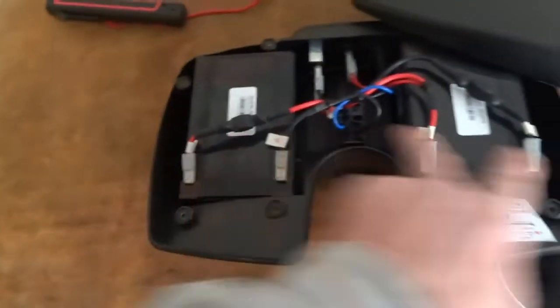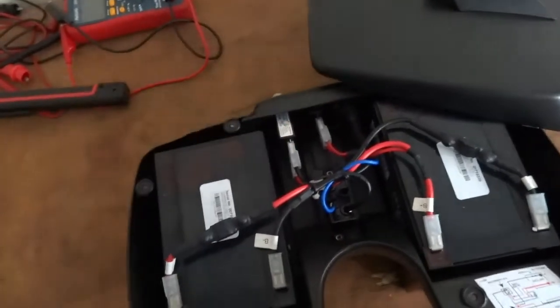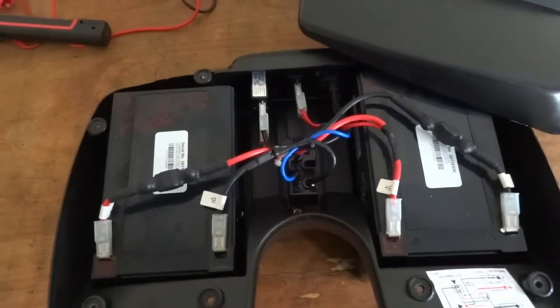So basically I'm going to test two batteries. You can test this, you can test the fuse and that's about all you have to do on here really. So we'll get set up.